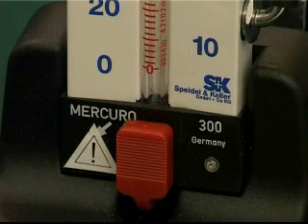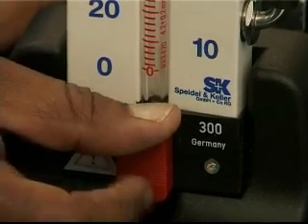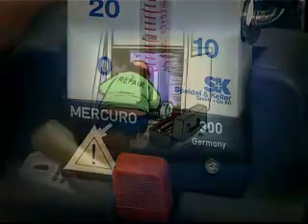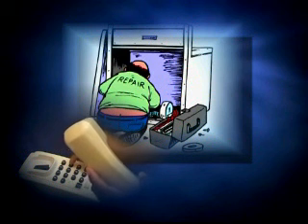When supplied as new, a mercury sphygmomanometer will have a seal between the mercury reservoir and the column. This prevents mercury being spilt in transit. This seal must be removed prior to use. Use the instruction booklet supplied with the specific unit to release the mercury into the column. If in doubt, send the unit to a qualified technician.